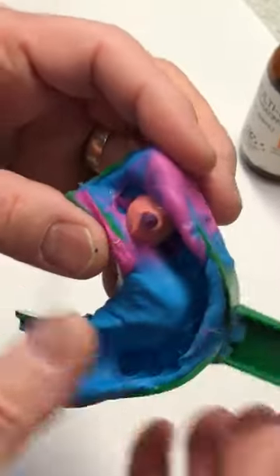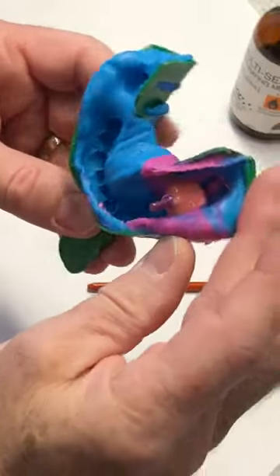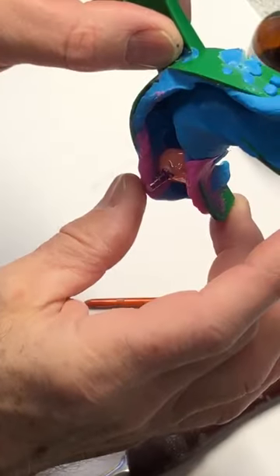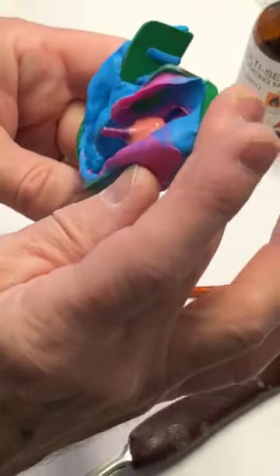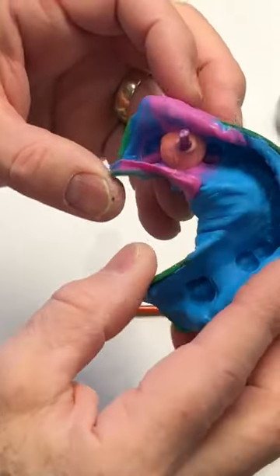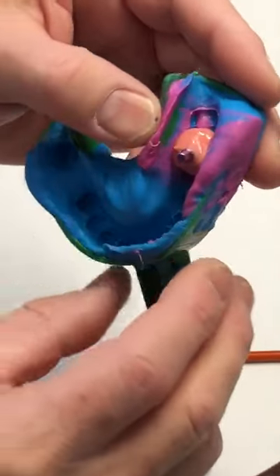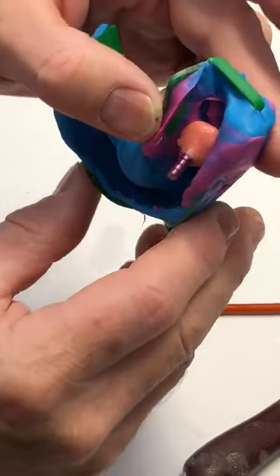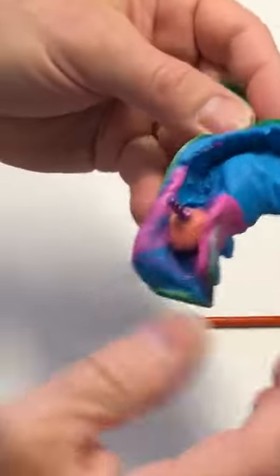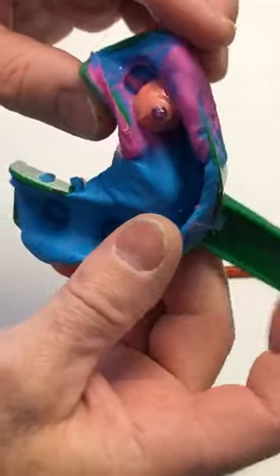Then we're done — it can be boxed and poured up. We'd like to try and keep this smooth so that it can be taken out of the model and placed back in accurately, to make sure that when we're doing the implant analog — whether it's a custom abutment or stock abutment — that it's fully seated.